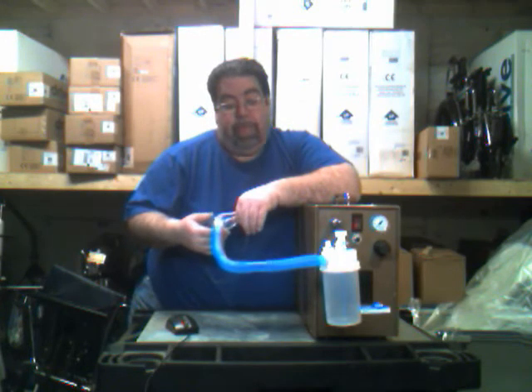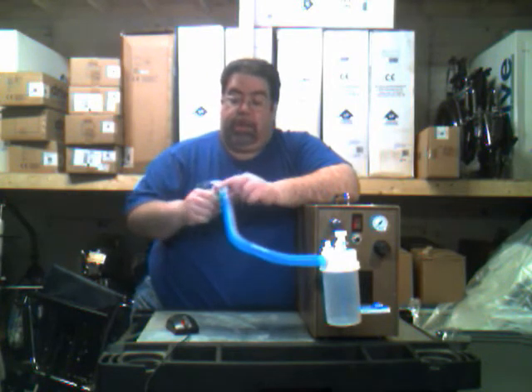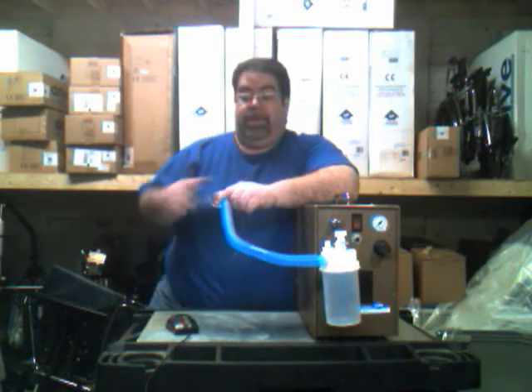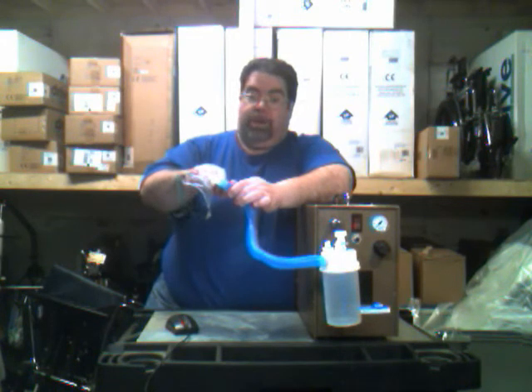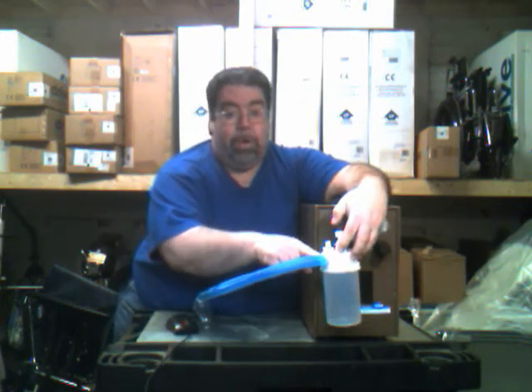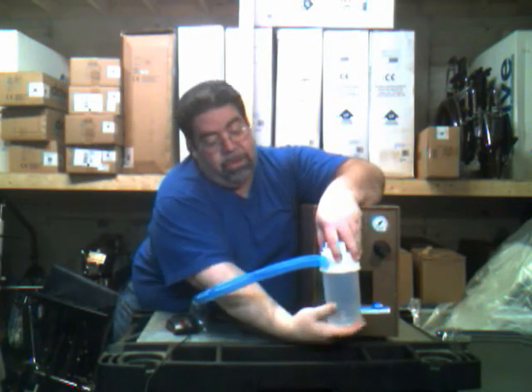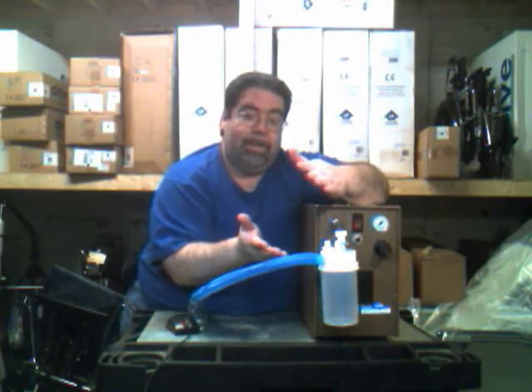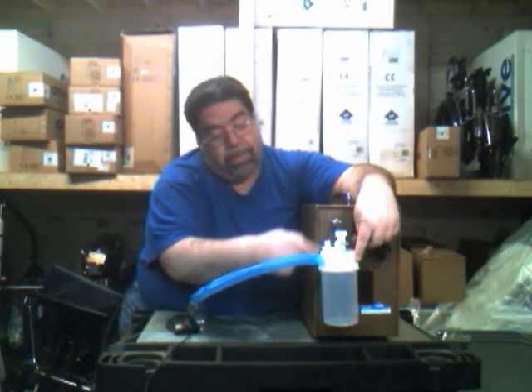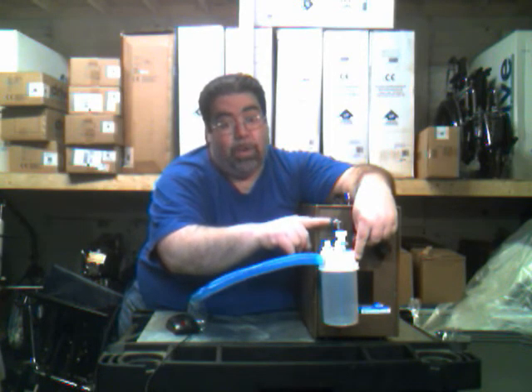There are a few troubleshooting items to go over. If you see that there's not enough mist coming through the trach mask, check your connections. Start at the patient and work your way backwards. First check where the corrugated tubing meets the mask — if that's snug, check the connection at the water bottle or jet nebulizer. If that's also snug, check the lid to make sure it's on right. If it's on sideways it will create a leak and the mist will not work properly. The same goes for the connection at the adapter.